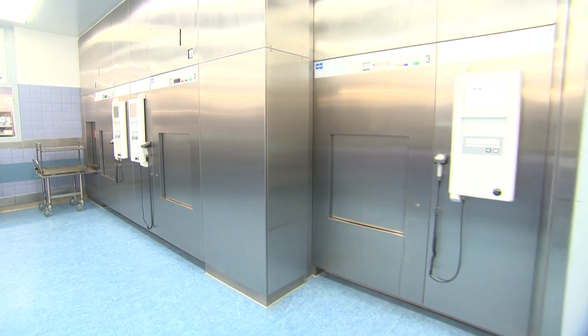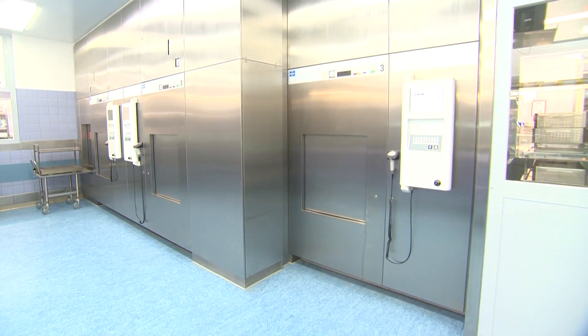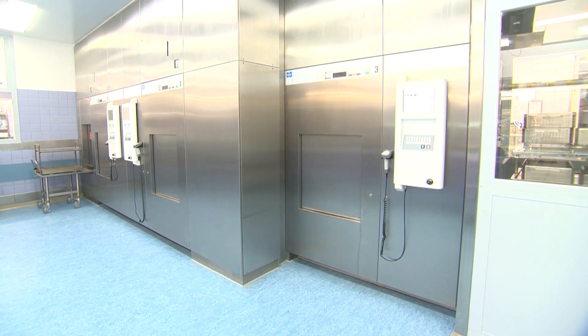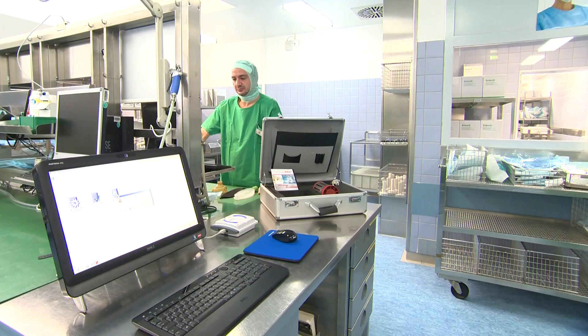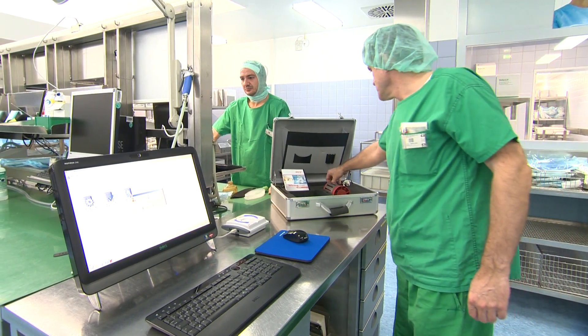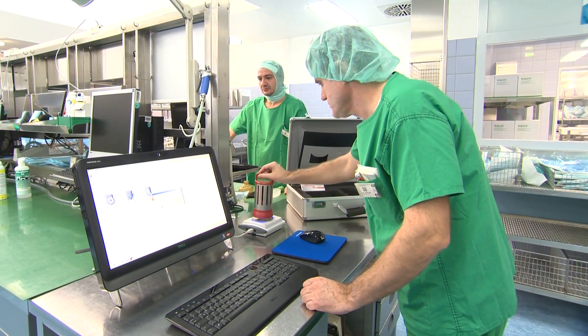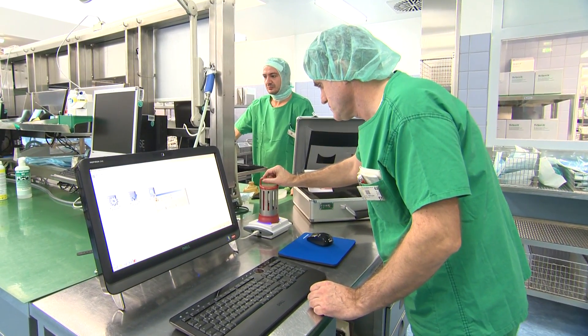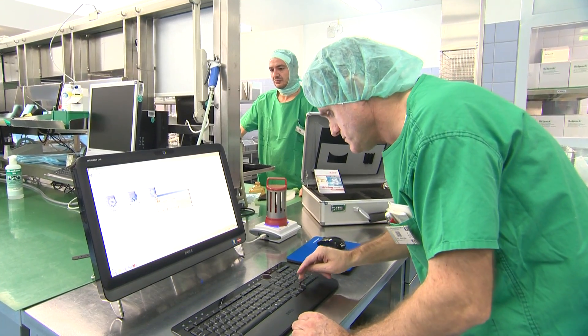The daily Bowie and Dick test is an important element in ensuring that the steam sterilizer is functioning properly. An alternative is the electronic Bowie and Dick test. Deficiencies such as air injection in the sterilization chamber, leakage, or inadequate evacuation will be reliably identified by the Bowie and Dick test.